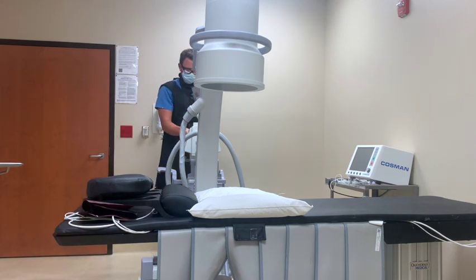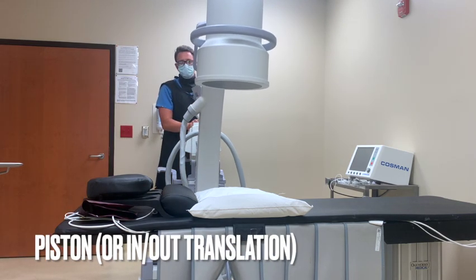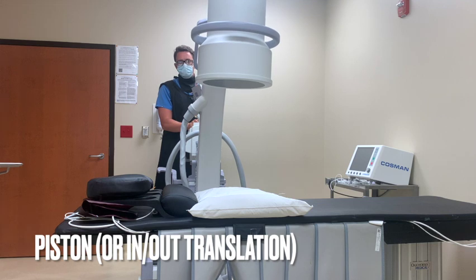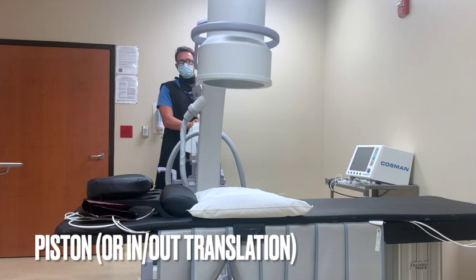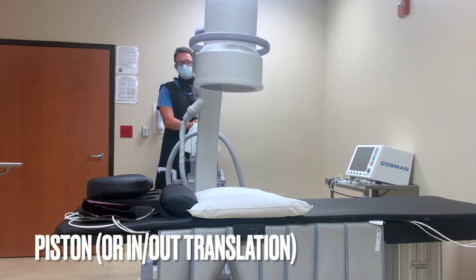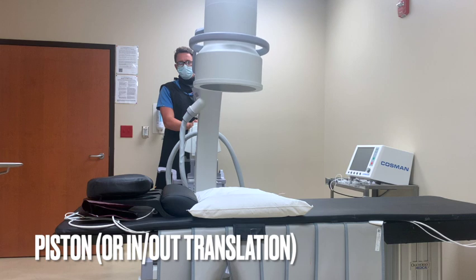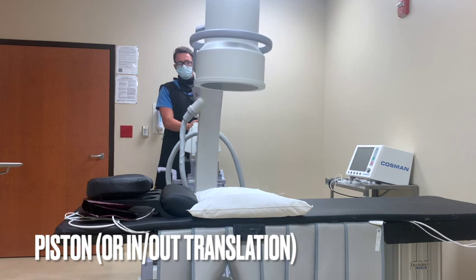The next movement we will display is the piston, also known as in or out translation. This is when the C-arm translates towards the patient's right or left.